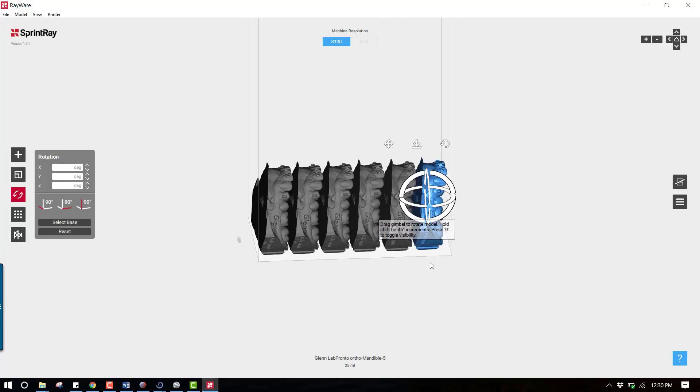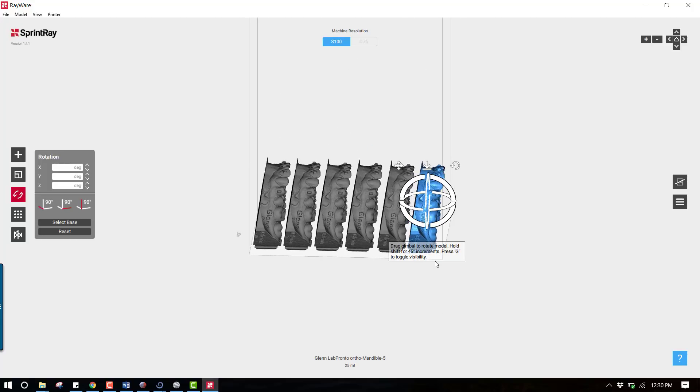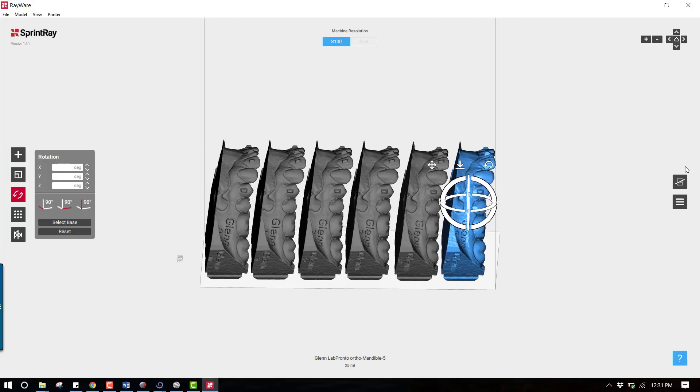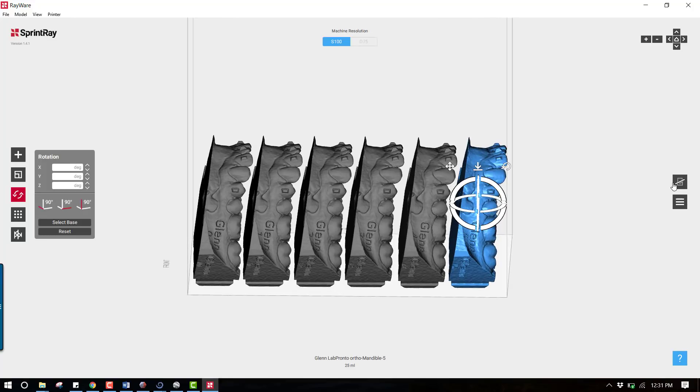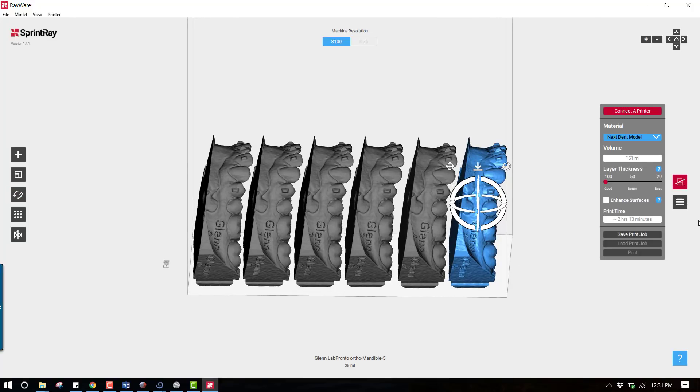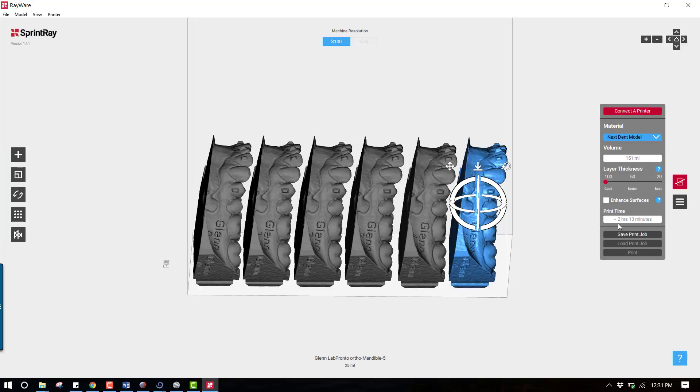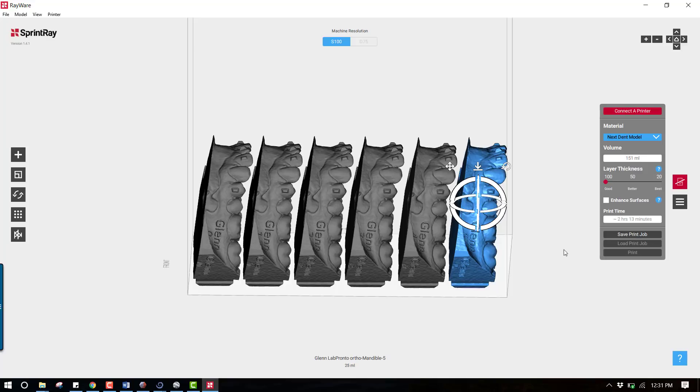Okay so that is now oriented. To print this you would simply go over to the right hand side - I'm not connected to my printer at the moment so it's grayed out but you would click on this, connect to your printer. You've got all these resins available - I really like the gray resin, you could also go with things such as the NextDent model resin, let's do that for example. If you choose 50 microns it's going to be a little finer detail print but for orthodontic aligners I find 100 is all that's going to be necessary. So 100 micron layer thickness and as you can see here it's going to take 2 hours and 13 minutes to print these six models as they're oriented right here.